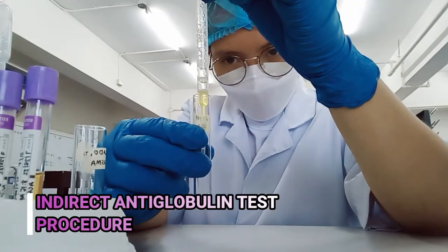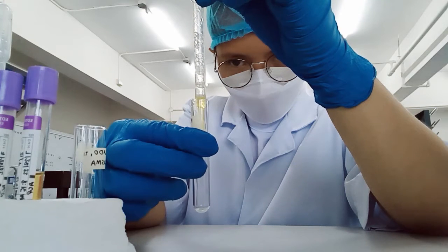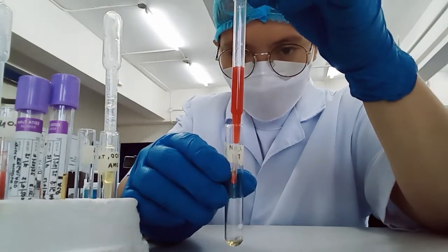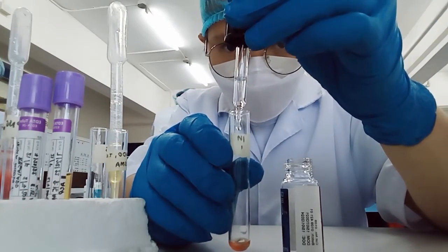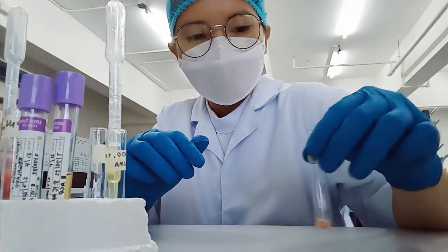Indirect antiglobulin test procedure. Add 2 drops of patient's plasma to a clean labeled test tube. Then add 1 drop of 5% Group O red cell suspension on the same tube. Add 2 drops of LISS. Mix and incubate for 10 to 15 minutes at 37 degrees Celsius.